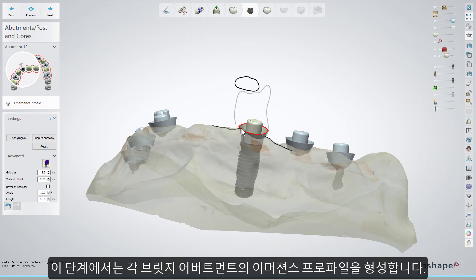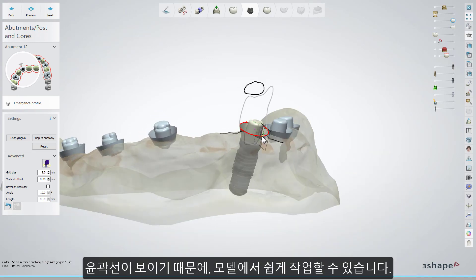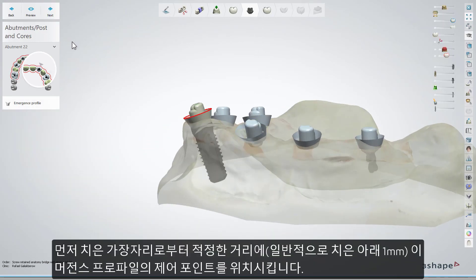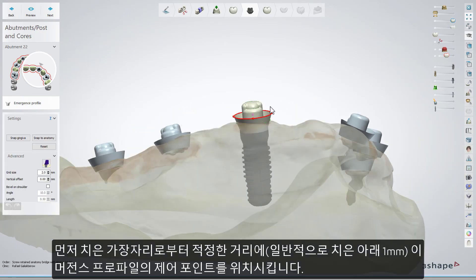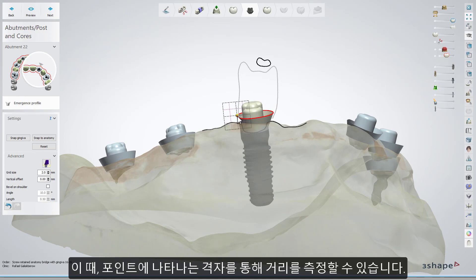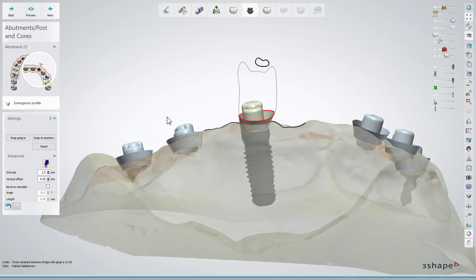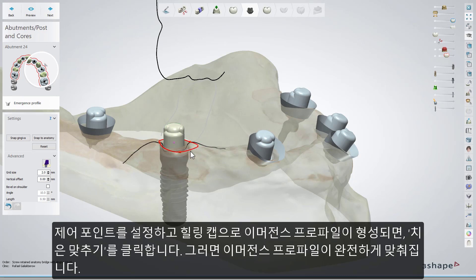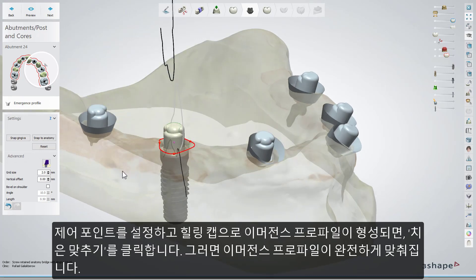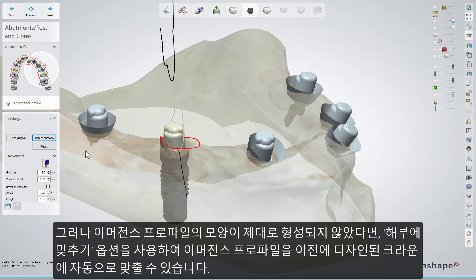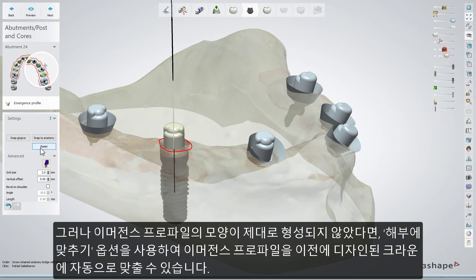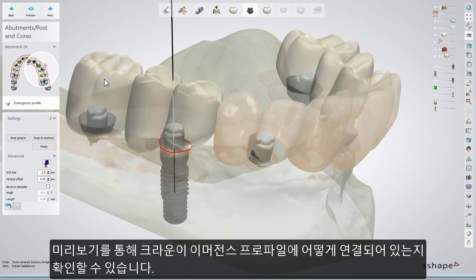At this design stage, you can shape the emergence profiles of each bridge abutment. It is easily done on the translucent models due to the visible contour lines. Start with positioning the control points of the emergence profile at the required level in relation to the gum edge — usually about one millimeter below the gingiva level. When activated, the points show the grid mesh, which helps to measure distances. When you have it at the required level and your emergence profile has been formed by a healing cap, click the Snap Gingiva button — this will fit the emergence profile completely. However, if you do not have a nicely shaped emergence profile, use the Snap to Anatomy button to automatically snap the profile to the earlier designed crown. Clicking Preview will allow you to see the crown's connection to the emergence profile.